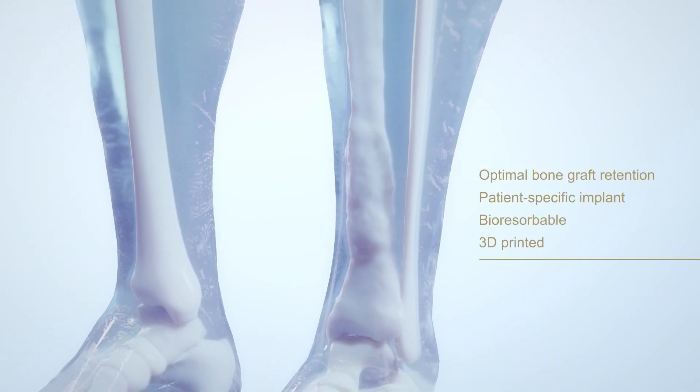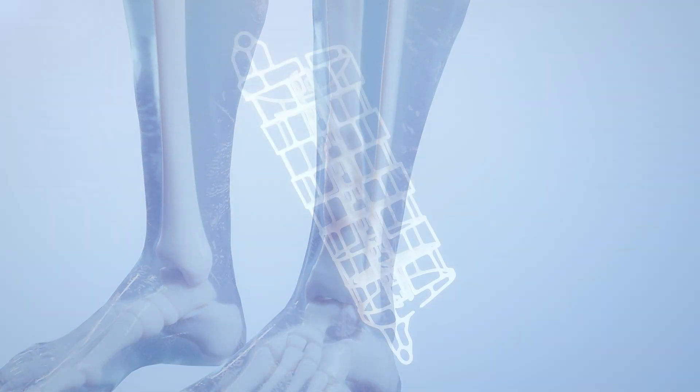TrueMatch graft cage long bone. Redefining critical-sized segmental defect treatment.